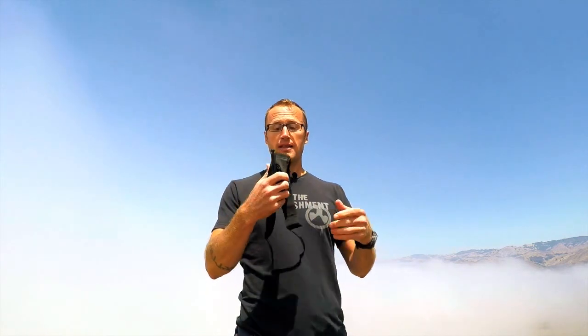If you've seen my review on the RATS tourniquet, you'll know it's by far my preferred tourniquet. That said, I keep Soft-T Wide tourniquets on my gear in the Blue Force Gear NOW Strap so they're visible. As much as I love the RATS, if I'm incapacitated and someone needs to put a tourniquet on me, the training isn't there broadly for the RATS — whereas pretty much everyone has used a CAT or Soft-T Wide.